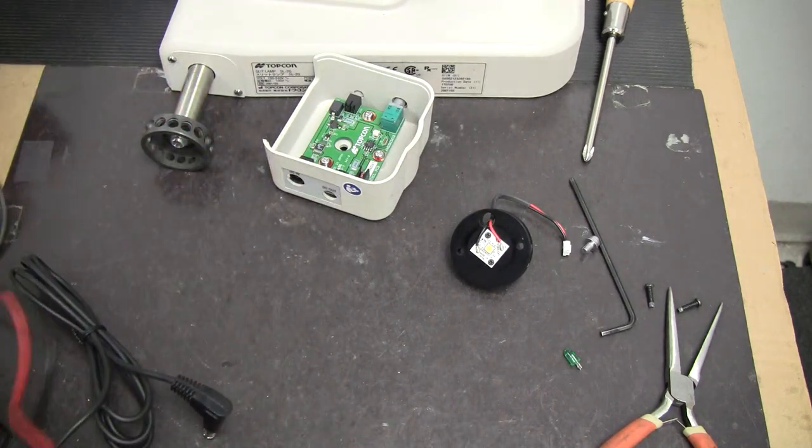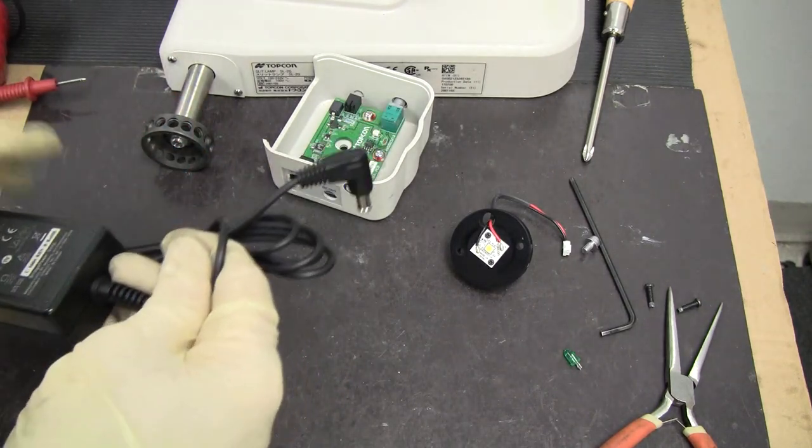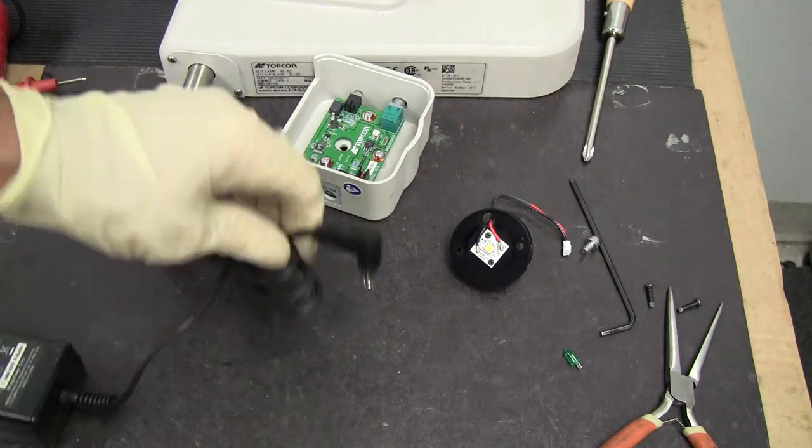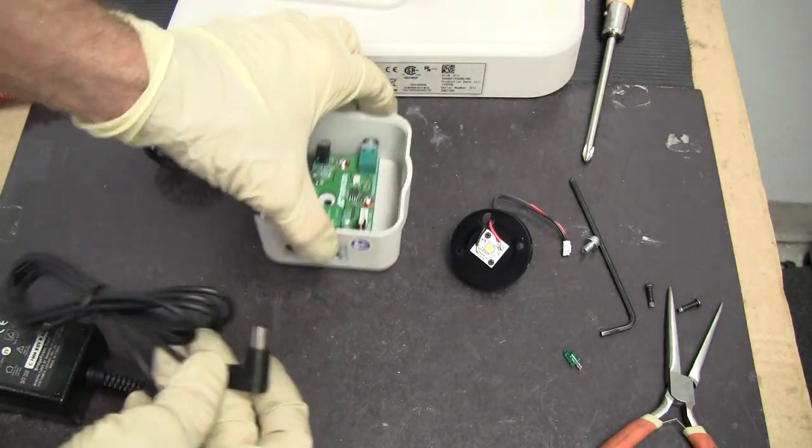So if you're getting 15 volts out of here, your power supply is good.